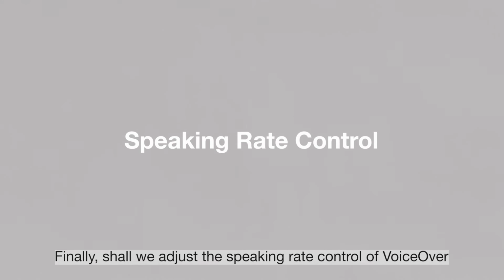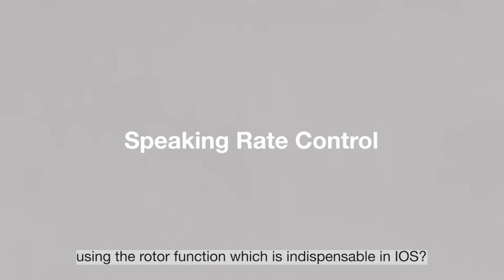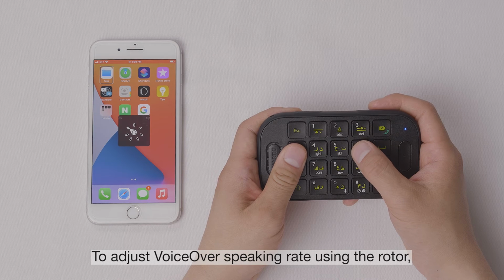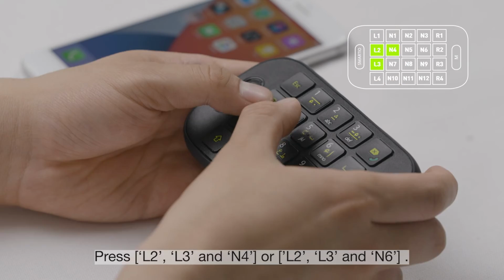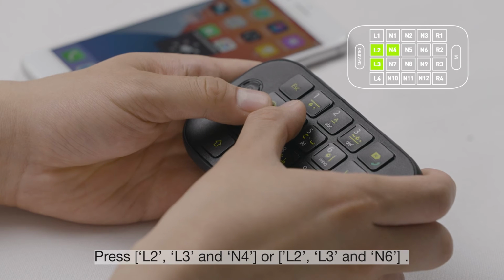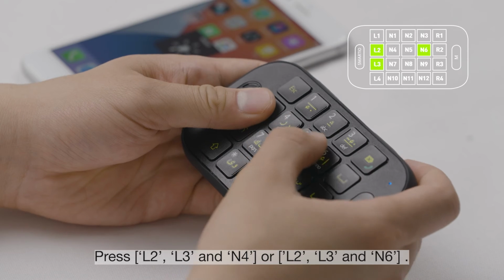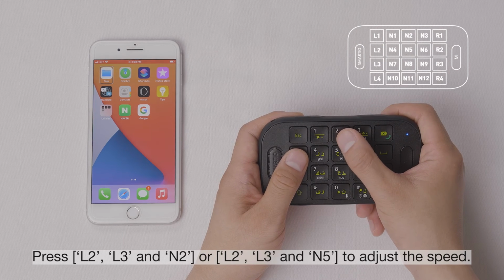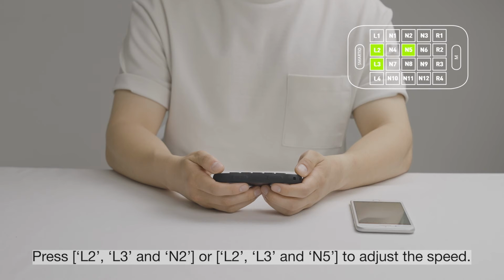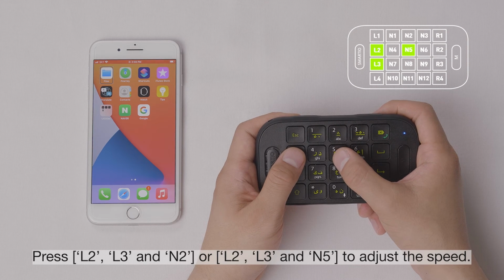Finally, shall we adjust the speaking rate control of VoiceOver using rotor function, which is indispensable in iOS? To adjust VoiceOver speaking rate using the rotor, press L2, L3, and N4, or L2, L3, and N6. Press L2, L3, and N2, or L2, L3, and N5 to adjust the speed.